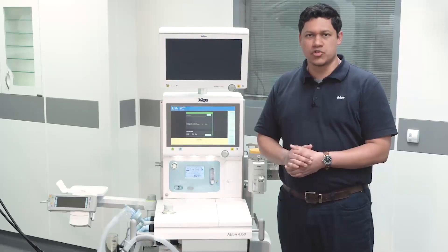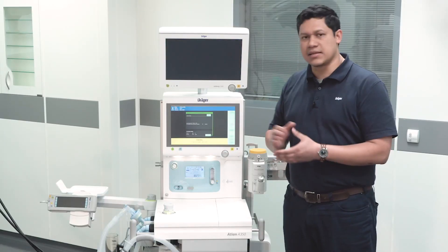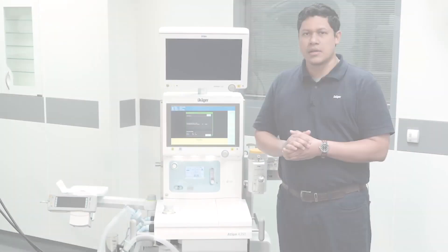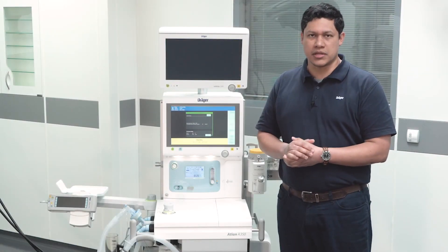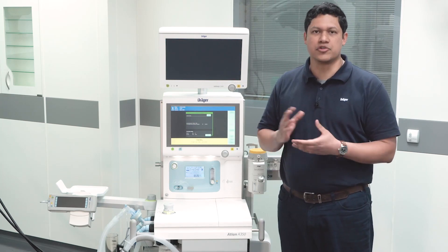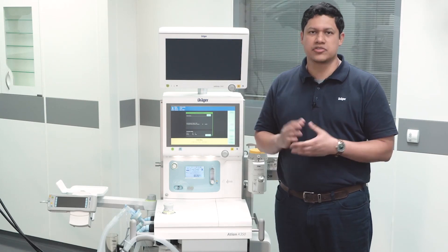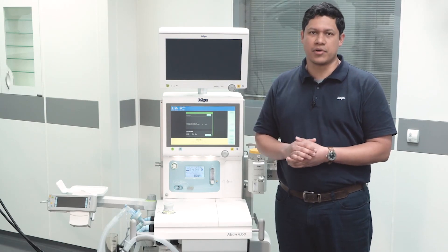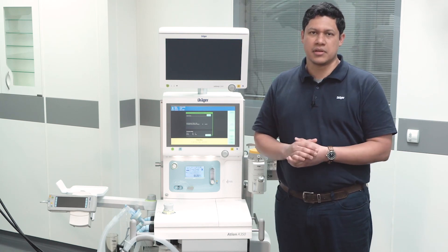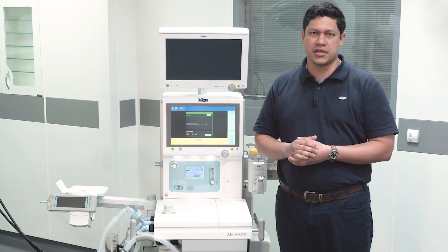The objective of this video is to provide you with the general recommendations on how to use the ATLAN family devices for long-term ventilation. Clinical staff should be instructed in the use of the anesthesia device and also should be familiarized with its functionalities. Make sure an experienced anesthesia colleague, like for example an anesthesiologist, is always available 24-7. In the case of any problem, please call for help at an earlier stage.